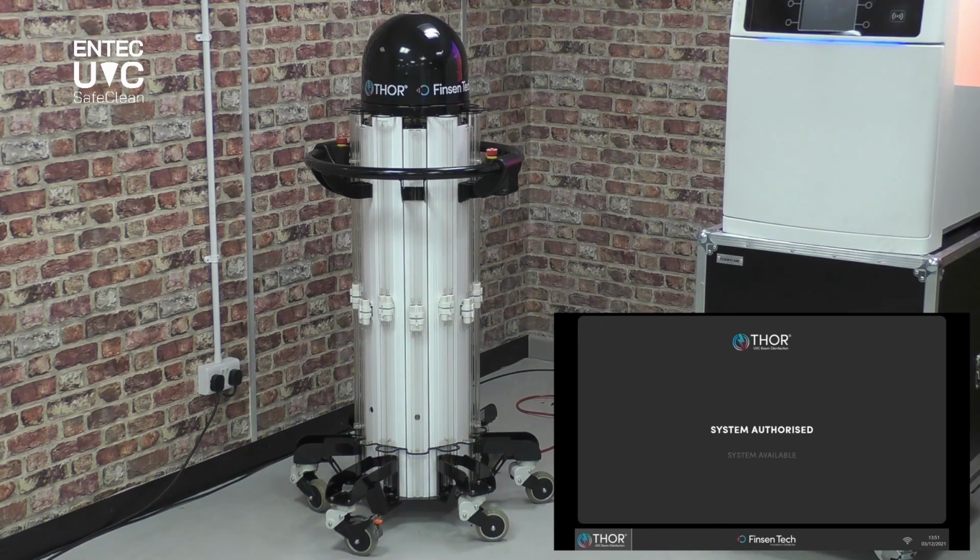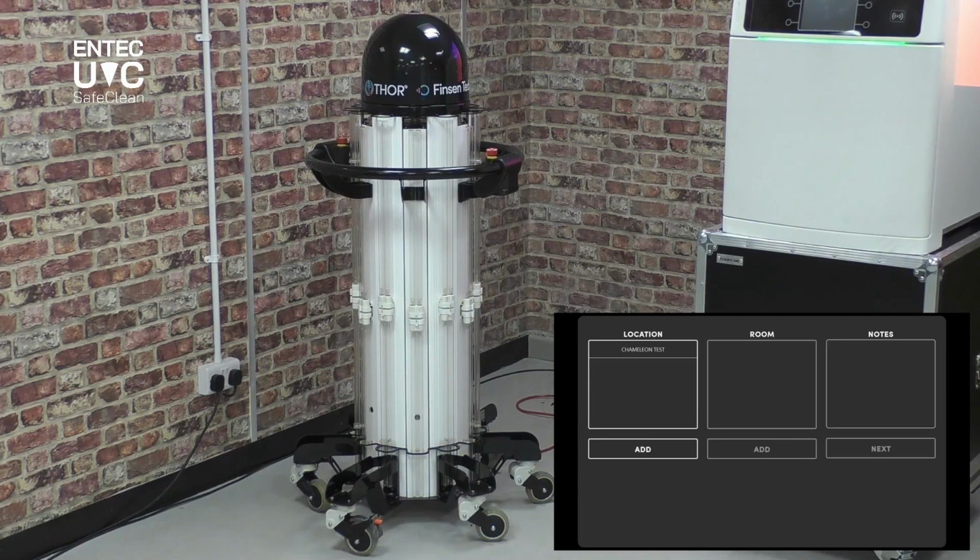The system will now interrogate and check that everything is okay and that the system can be authorized, and then it will do the self-checks that the system is available, the system check for calibration, mains power, the scanner's ready, and that no one else is attempting to use the device. And as you can hear, the system has just spoken that it's actually connected because there is a voice modulator on Thor. Simple reason is people respond better to voices than they do to alarms.